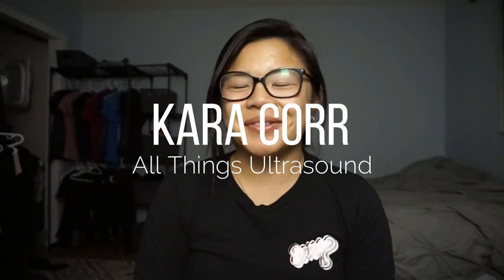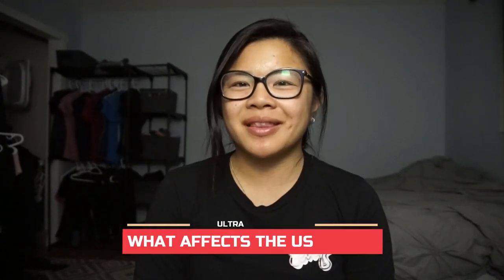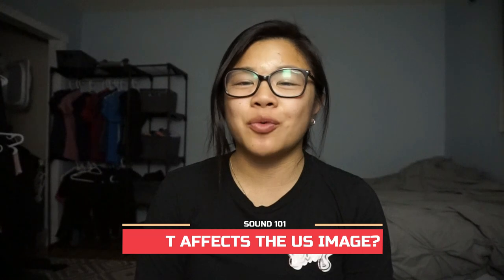Hey, my name is Kara. I'm an ultrasound tech, and let's talk today about some of the things that can affect the quality of images during the ultrasound scan that you have. I am talking more towards obstetrical scans, but this can obviously apply to any sort of general ultrasound scan as well.